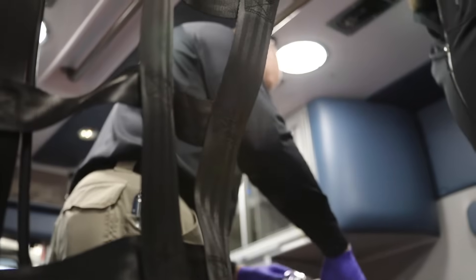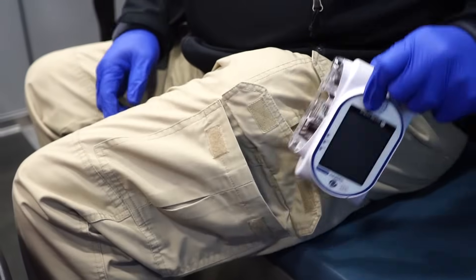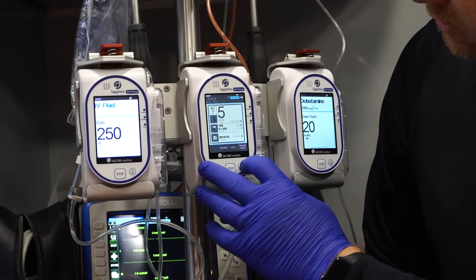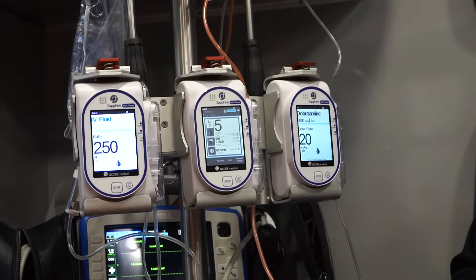Plus the portability — what else are you going to carry around in your cargo pants or cargo pocket? It's awesome. There are 40 different clinical care areas within the pump itself, and each one of them can hold around a thousand medications. So you can put any formulary of any medication, the concentration, whatever you could possibly use within your med set, and just literally with the touch of a button you can pull up that medication for easy administration.